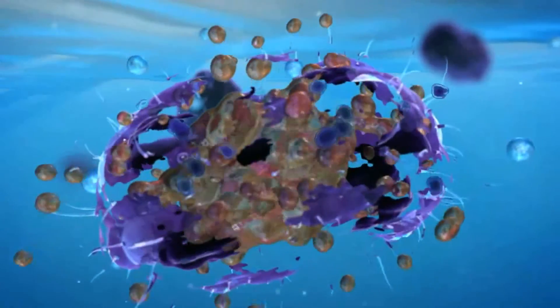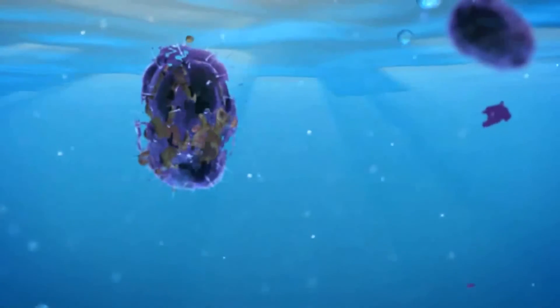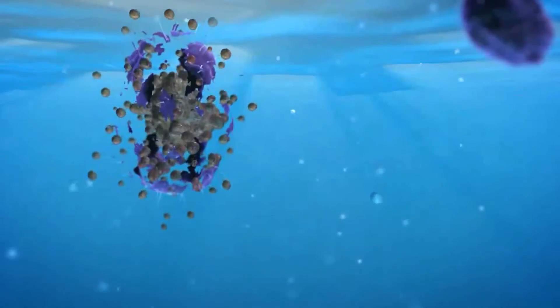In fact, with only a four-hour soak, BioTrue penetrates, disrupts, and disintegrates microorganisms, and it does this while remaining compatible with soft contact lenses and the cornea.